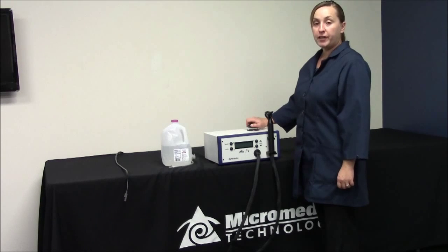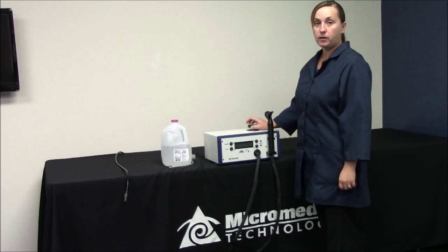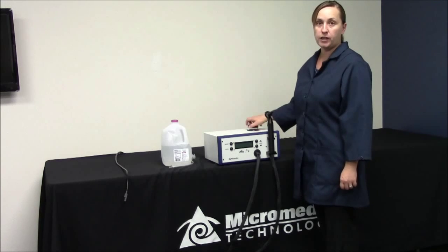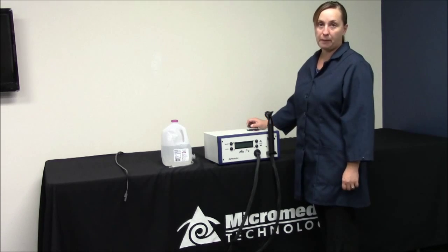Hi, today we're going to talk about filling the MicroMedical AirFX Irrigator. This would be something that you would have to do if this is your first time pulling it out of the box or if you just finished transporting it and you need to fill it back up with water.